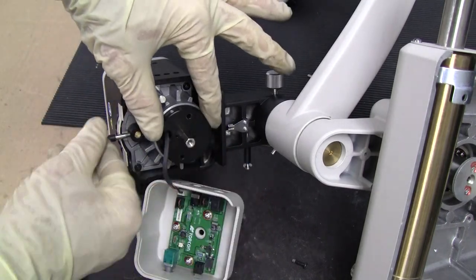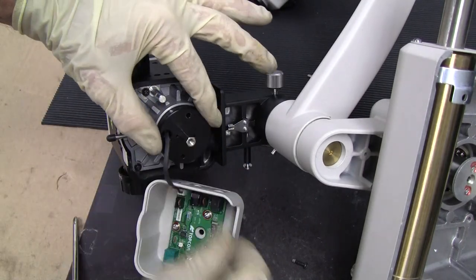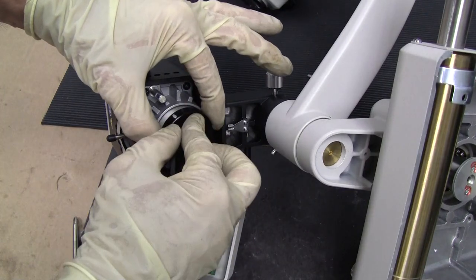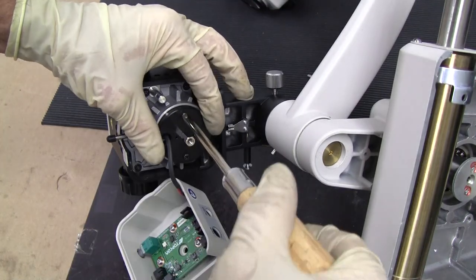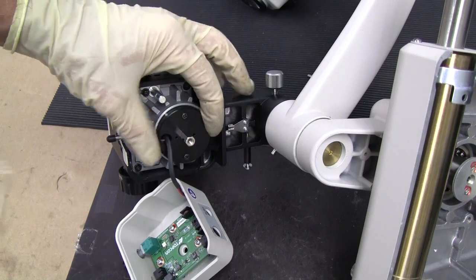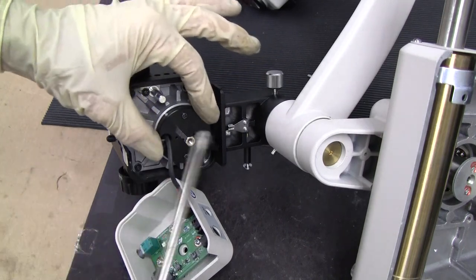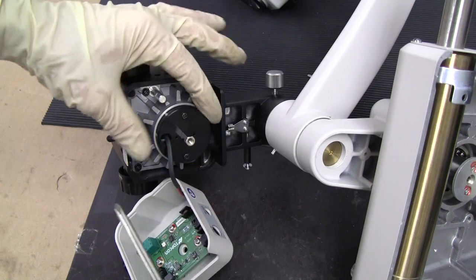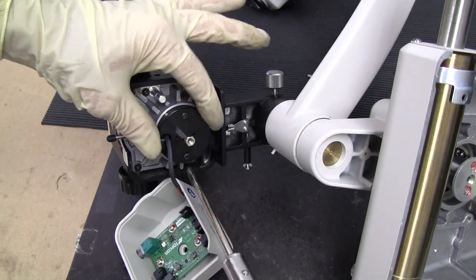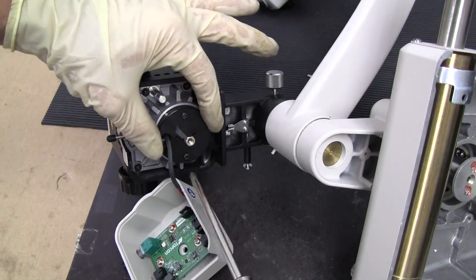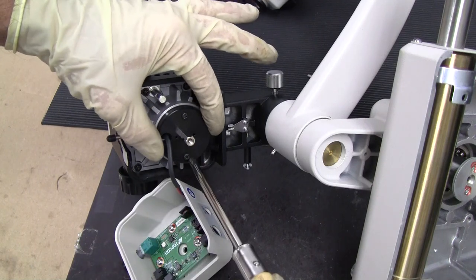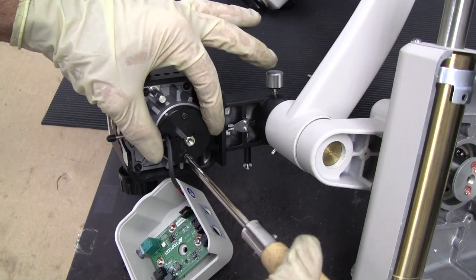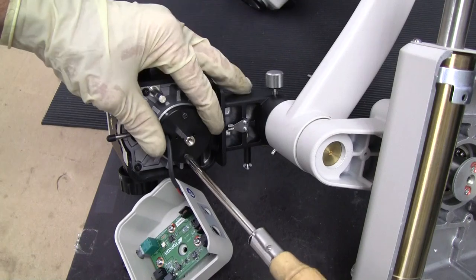When it's time to put it back on, this is the front. There's a little bit of wiggle room here. You may have to look through at your target once it's on and see if you need to adjust this disc a little bit to get a better light.